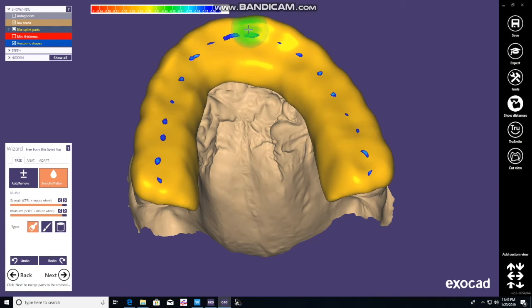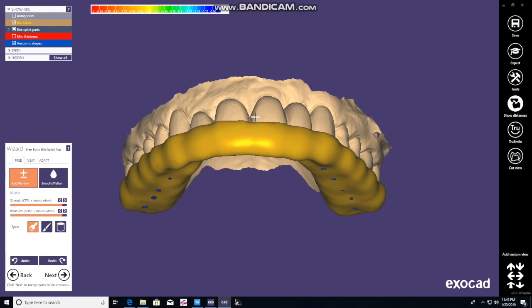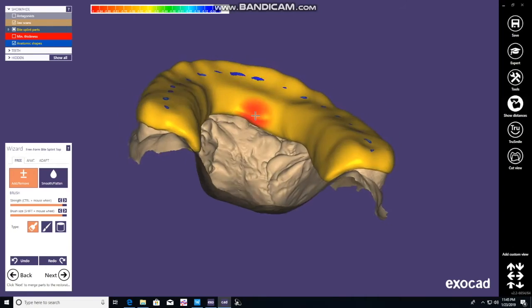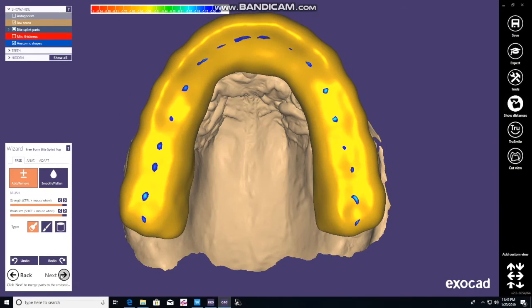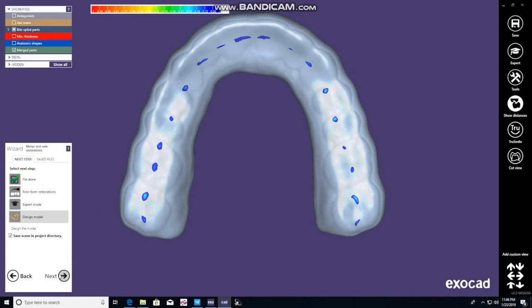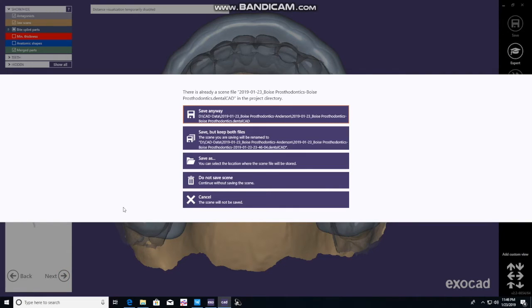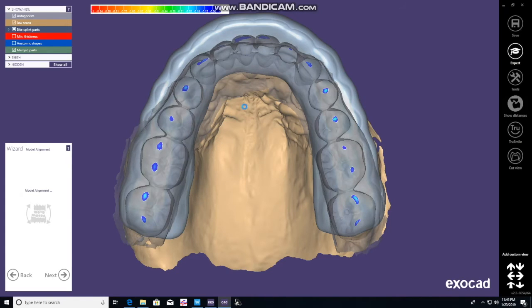When you're done, you would click next and we're going to go ahead and build the models for the night guard to be tested on. Or if you want to mount it and correct it in the lab, you can — any fine-tuning of the occlusion. Now it's ready. It's forming it into an STL file that you can print. In this case we're going to stop recording and move on and do the bases.